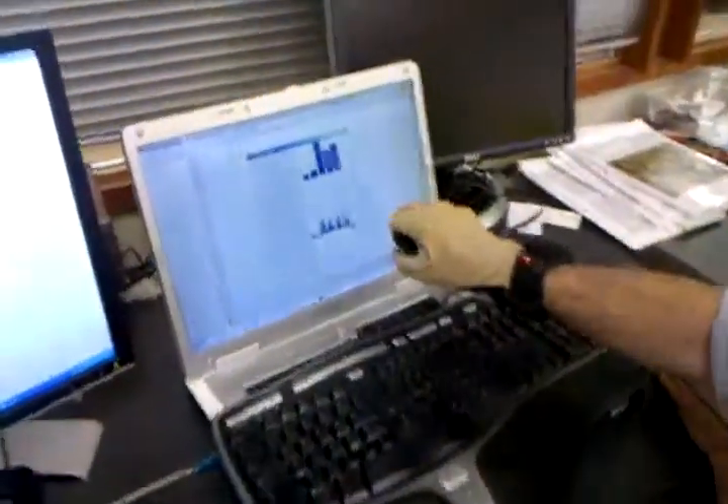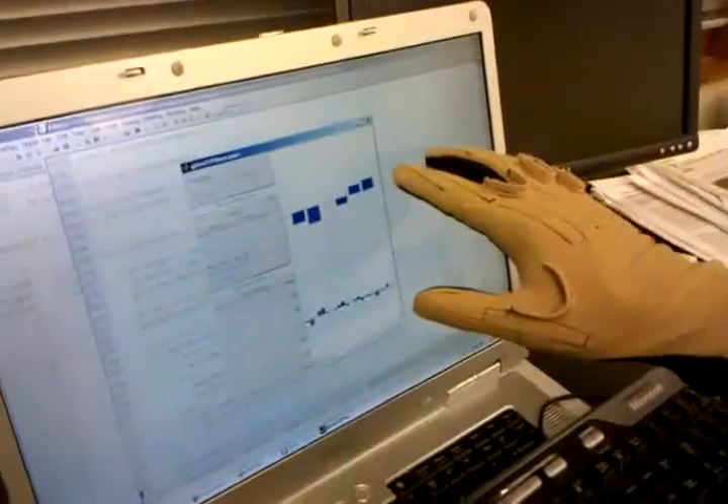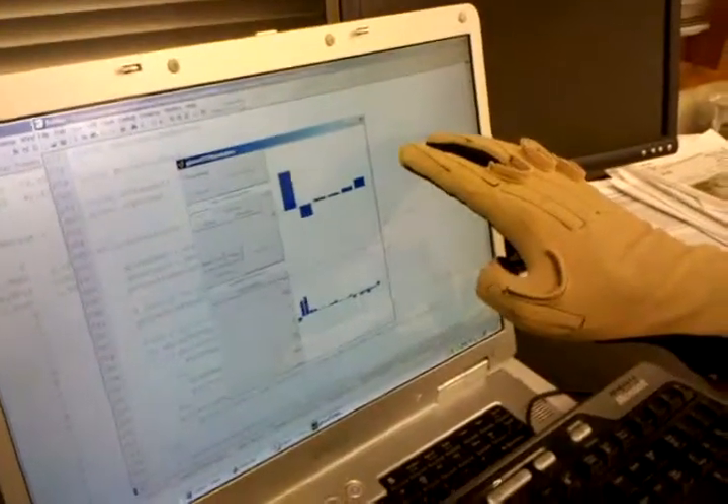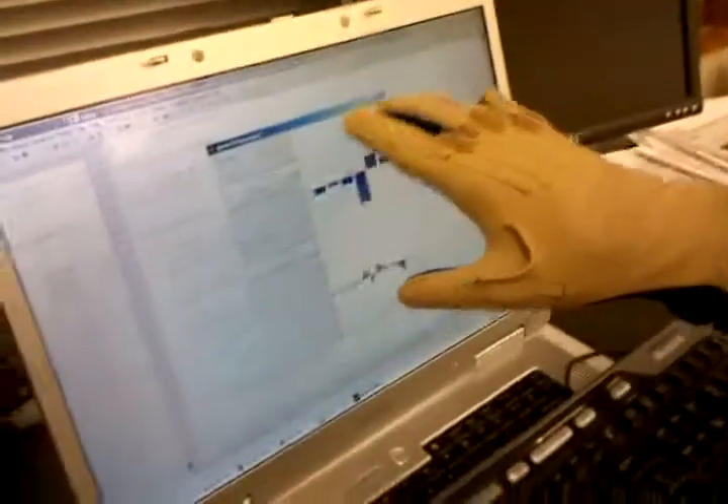So these are the raw values here. These are the projections onto the various muscle synergies. This is the network connection.